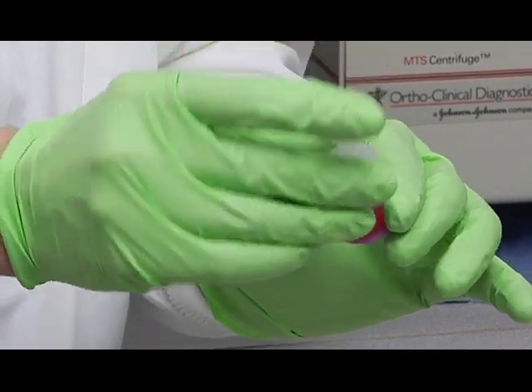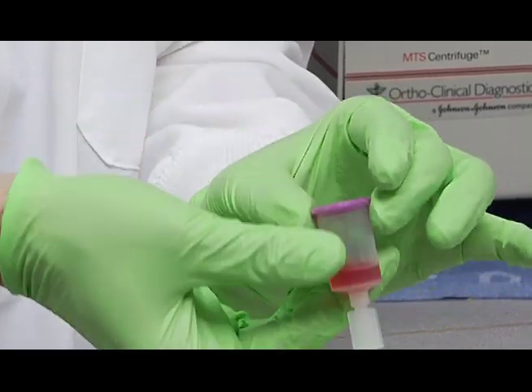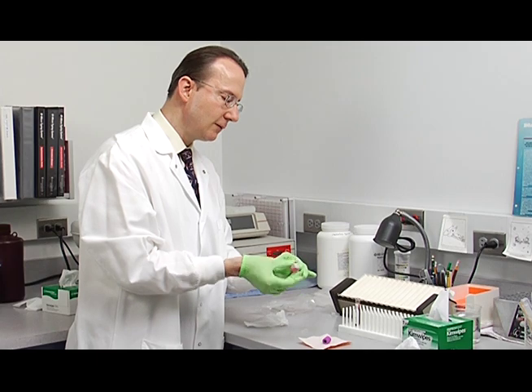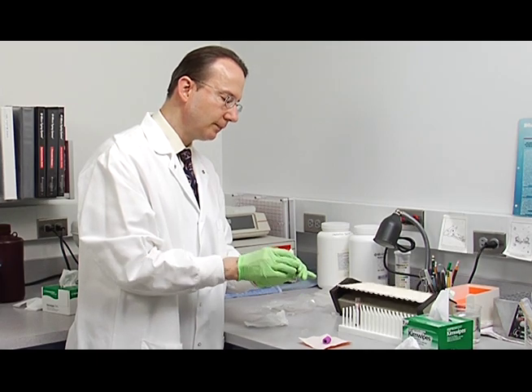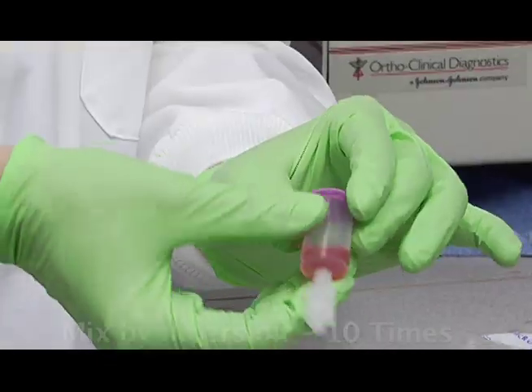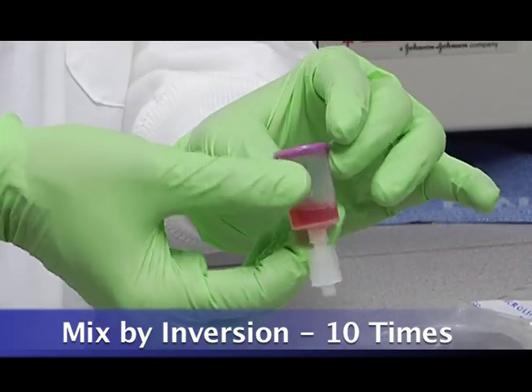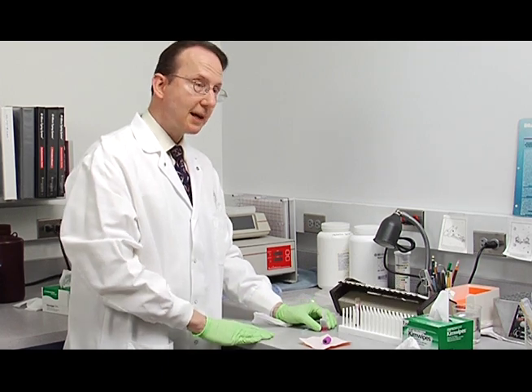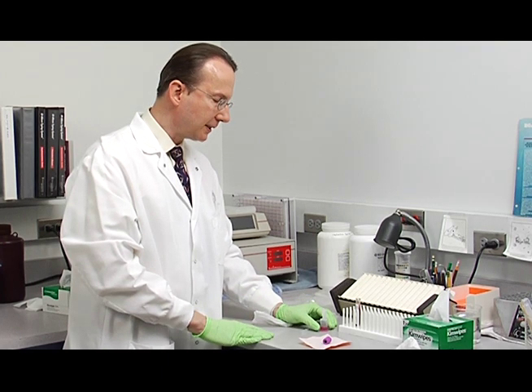And then after that's rinsed out, then you want to mix again a minimum of ten times. Ten inversions. Then we'll set the reservoir down. It needs to set for ten minutes for adequate lysis.